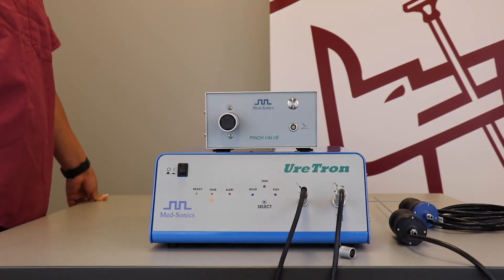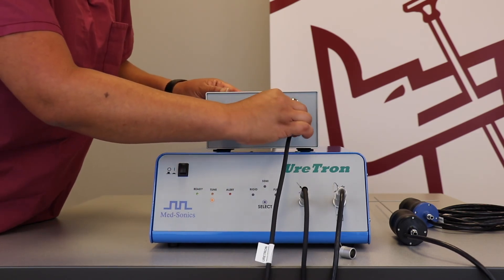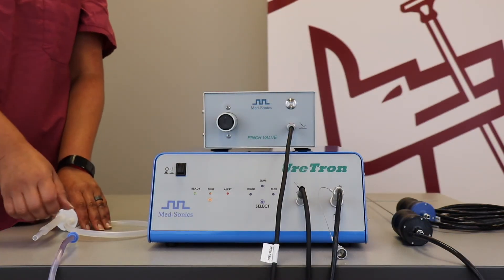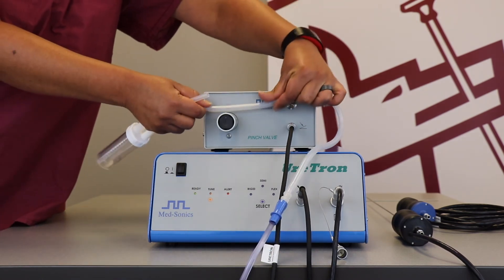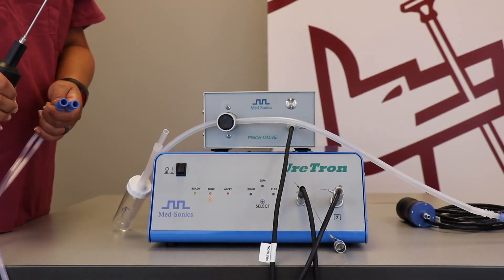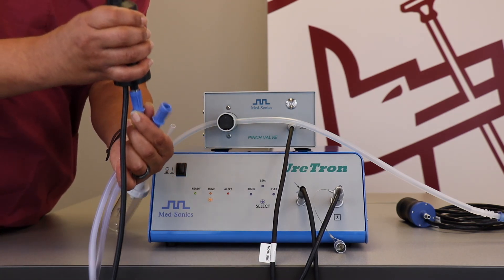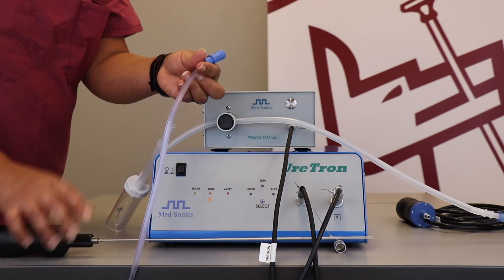When using the suction pinch valve, you will plug in the secondary cable from the dual foot switch into the unit by lining up red dot to red dot. To attach the non-sterile suction tubing, you must stretch the silicone portion of the tubing and place it into the valve. You are now ready to attach the sterile suction tubing. There are two ends: one end goes to the back of the handpiece, the other will go to the specimen trap. The unit is now ready for use.